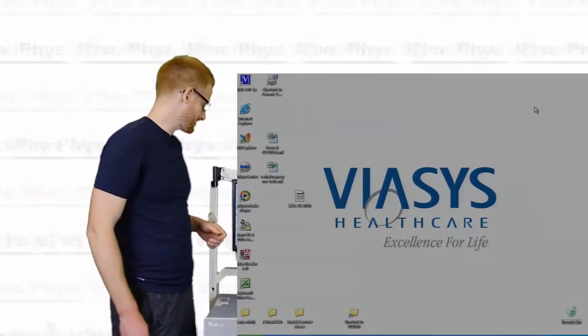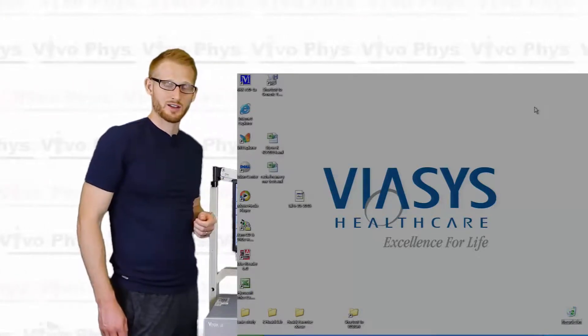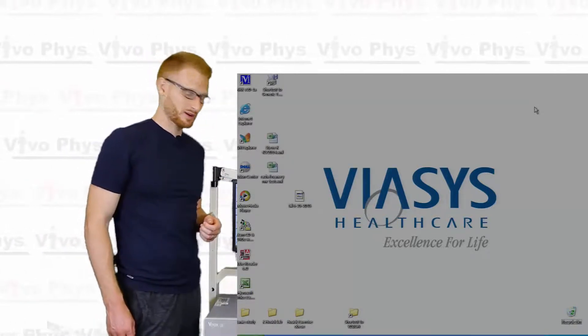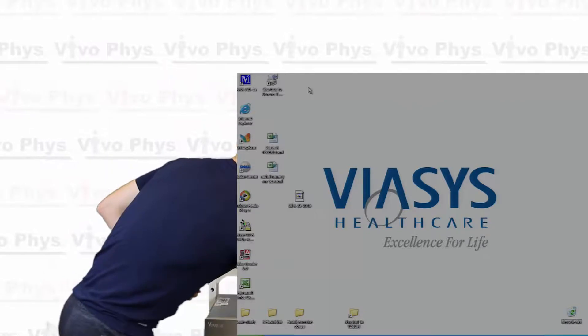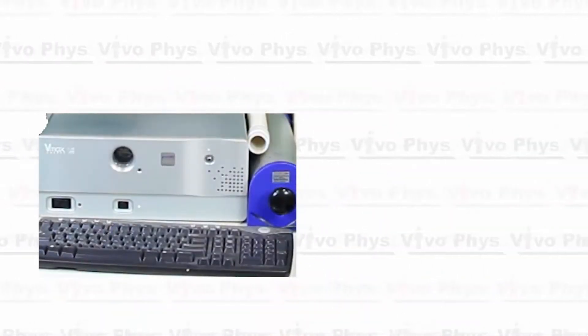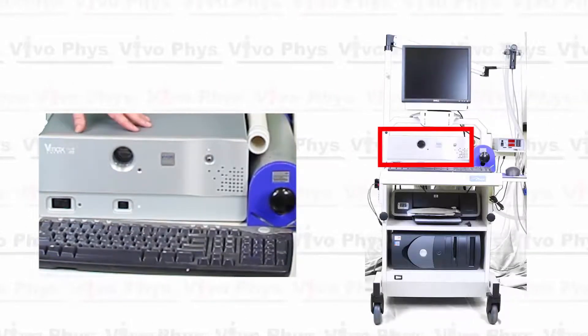Alright, so what we're going to need to do now is open this top icon, the VMAX software. Alright, so at this point, we can go ahead and turn on the fans within this part of the metabolic cart.